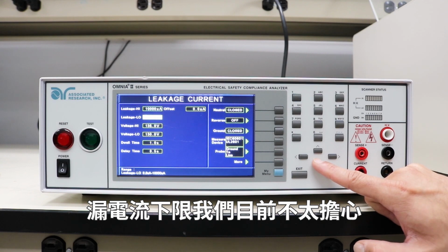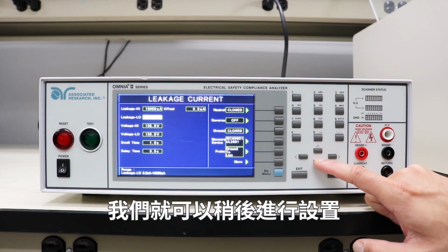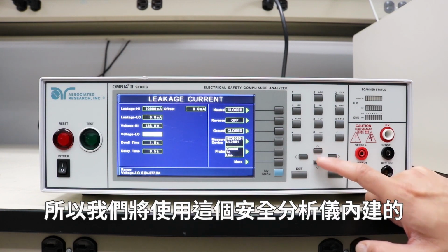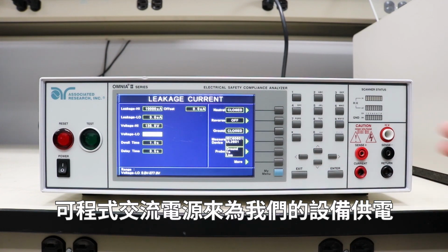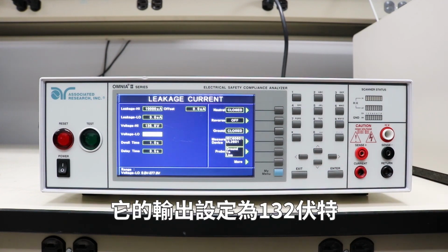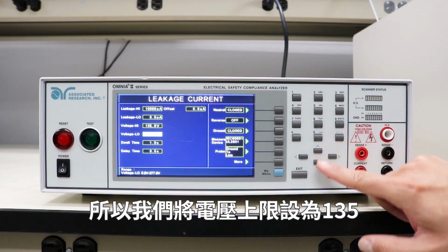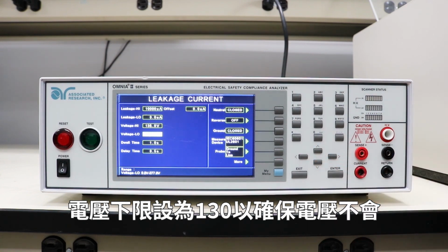Leakage low, we're not too concerned about at this point. We can set that up later once we know how much leakage current we're going to be seeing on our product. Then we have voltage high and voltage low. We will be powering up our device using a programmable AC source that's built into this safety analyzer, and it's set to output 132 volts, which is 110% of the rated line voltage of this device. So we have our voltage high at 135 and voltage low at 130 to make sure that the voltage does not change too much.